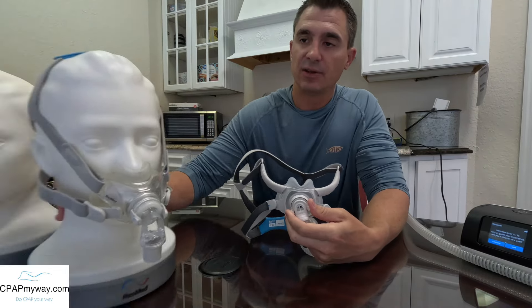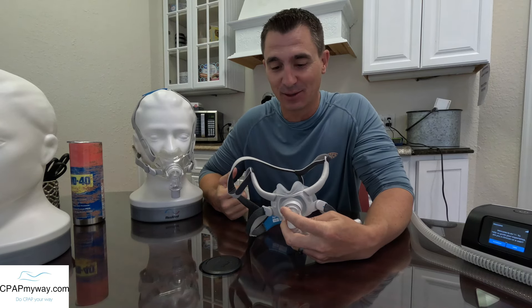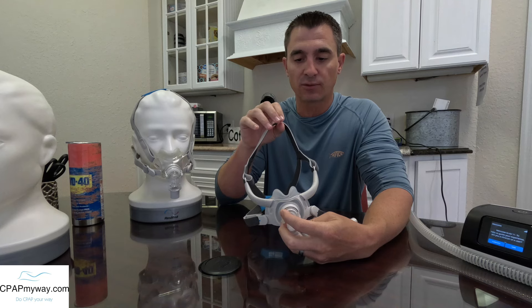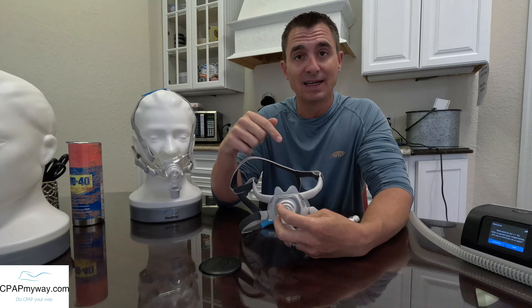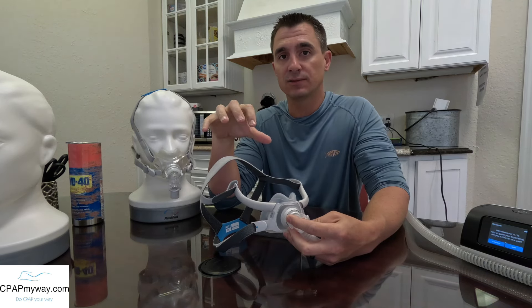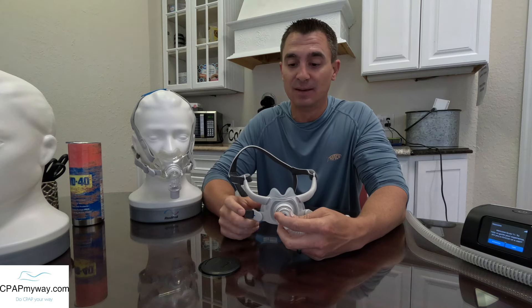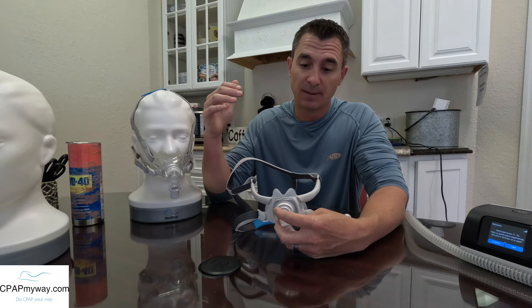Overall, to give you the rundown as to whether or not I'd recommend it for you, I do see this one as a genuine upgrade. All of the features I went over are an improvement on the F30. So if you have tried the F30 and failed, I would say this is still worth a shot to see if it would work for you because it is a pretty large departure from that. There were some shortcomings on the F30, and this one now has a small wide, a medium, and a large size cushion in addition to the small, standard, and large headgear — so it's going to fit a larger variety of people. Also, if you're currently on the F30 and happy, if it ain't broke, don't fix it. But this one has the similarities to the F30 that were really nice, in addition to some upgrades, so it's probably worth a shot to see if you could improve your sleep and comfort with the upgrade to the F40.